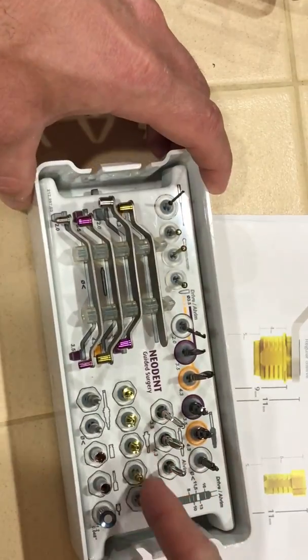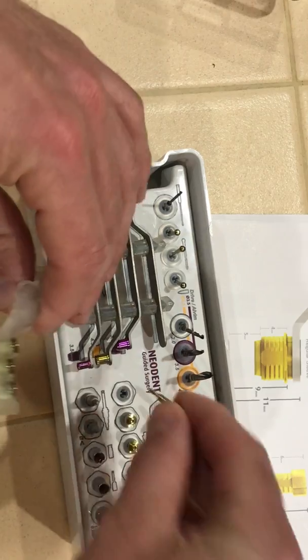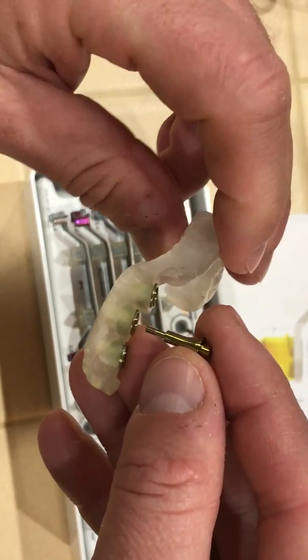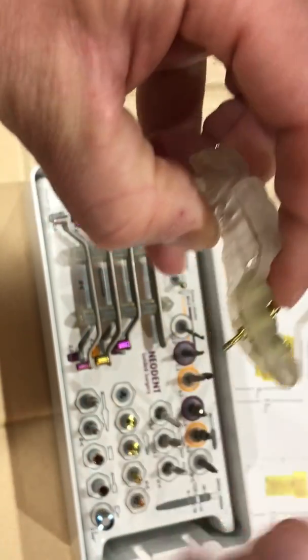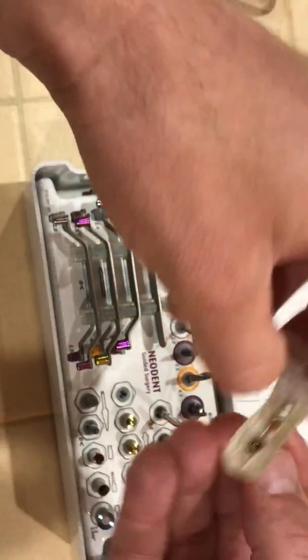In the bottom row here, these are plugs. Let's say we've placed our implant and want to add some additional fixation to lock the guide in place. Once the implant is placed and we've removed the implant driver, you can turn this plug down in — it locks into the implant at the bottom and just helps fix everything in place.